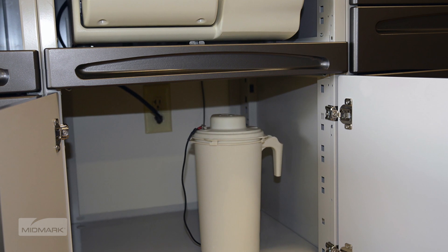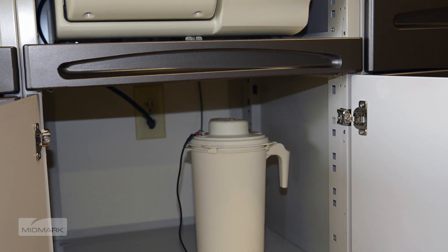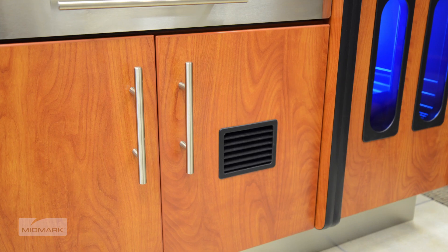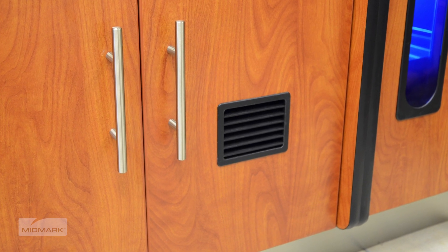If enclosed in a cabinet, the support surface and surrounding surfaces should be protected with a water-resistant material, such as plastic, laminate, or stainless steel. It's also recommended that the door be vented to avoid heat, moisture buildup, and potential damage to the inside of the cabinet.